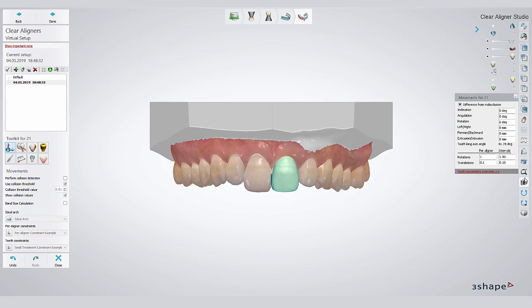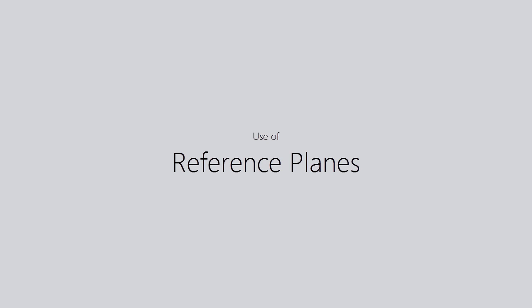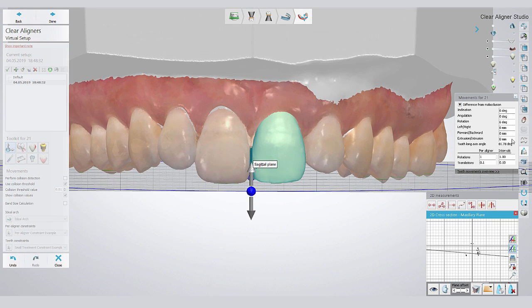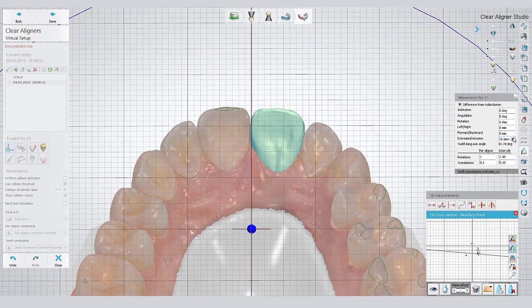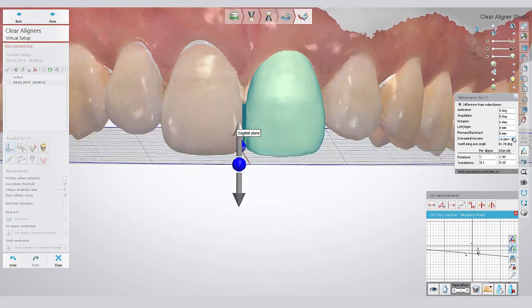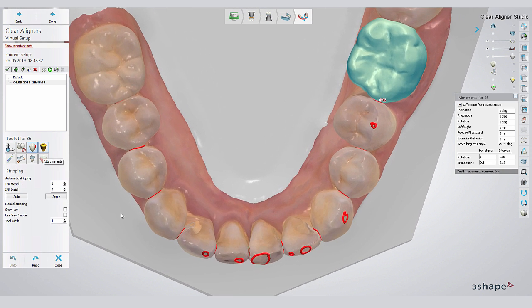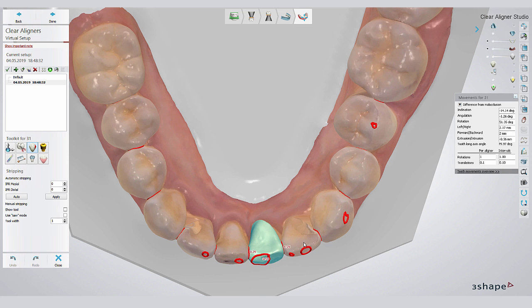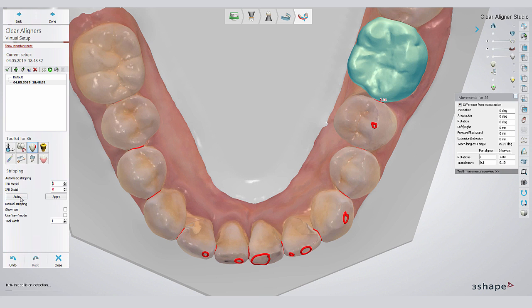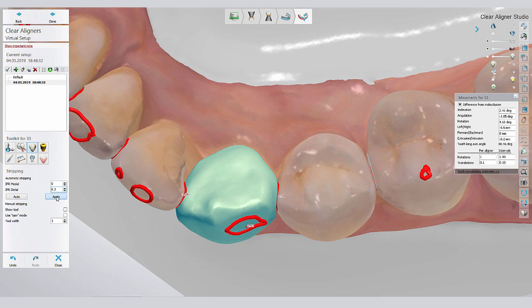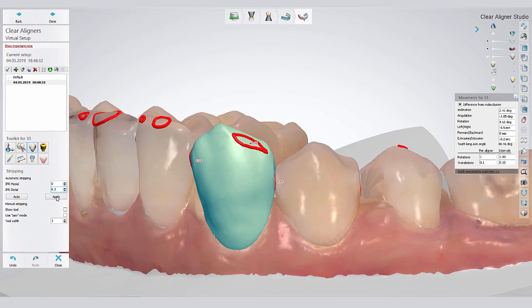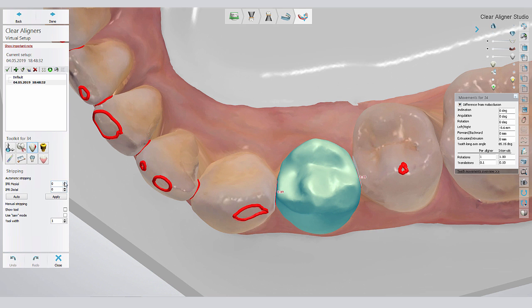I always like to work with reference planes for my virtual setup. They provide a grid which creates great contrast and allows me to perform very precise tooth movements. Now let's have a look at the automated stripping or interproximal reduction. If you click on a single tooth, the software will display the values for each tooth of the necessary interproximal reduction. The procedure is very easy — you select the tooth and then set the values for your mesial and distal interproximal reduction.